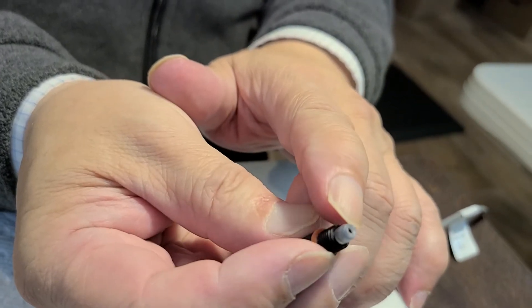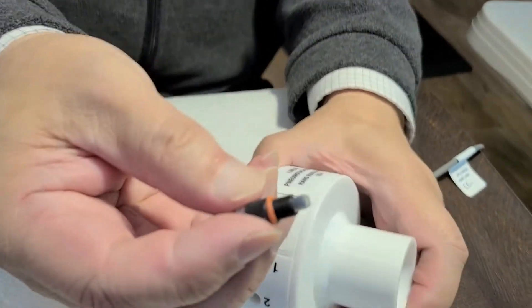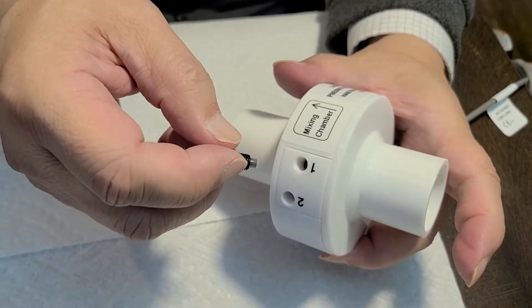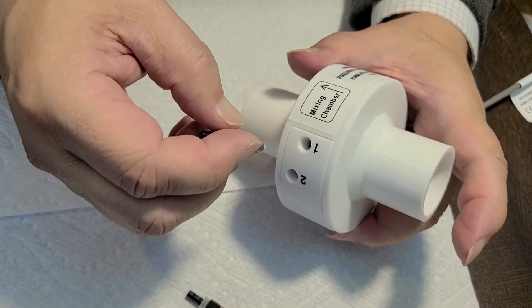This protruding portion is important. It will keep the pressure port sealed and the pressure signal can come out.